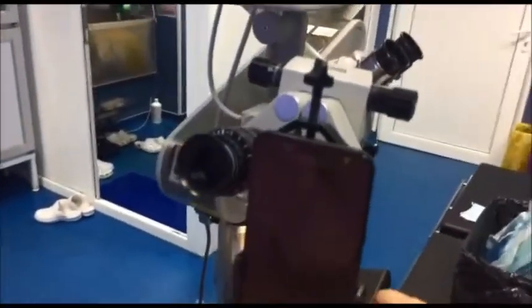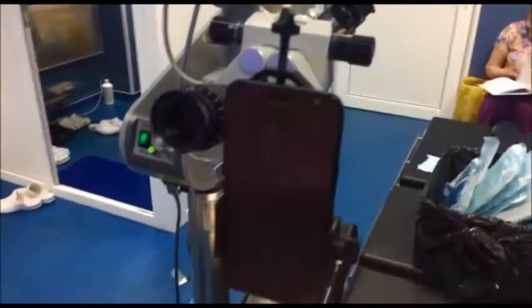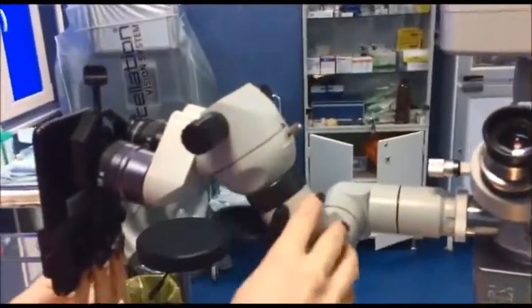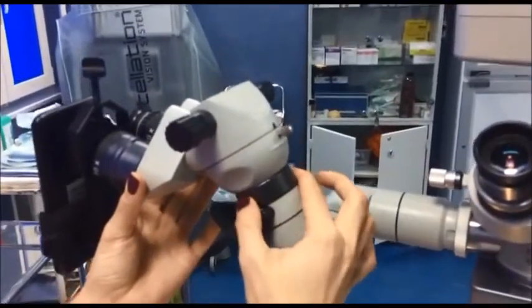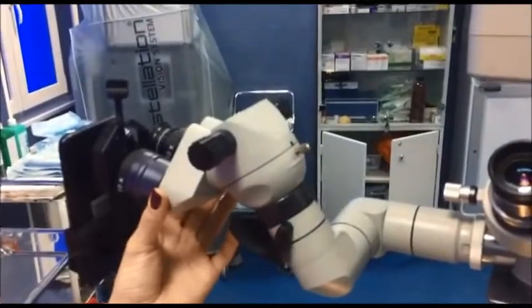when you have your technician or the colleague that will help you during the surgery, he will watch the image on the smartphone the whole time and will get your attention to move the microscope to one side or another to center the image on the smartphone.